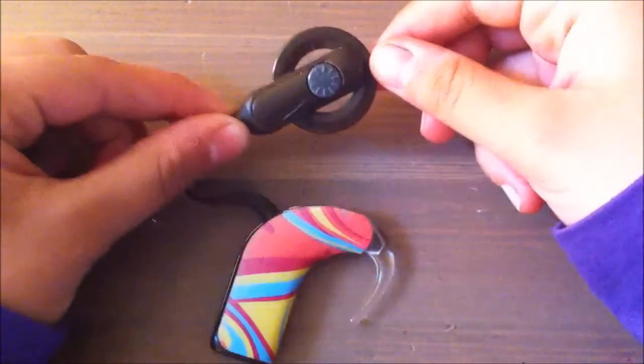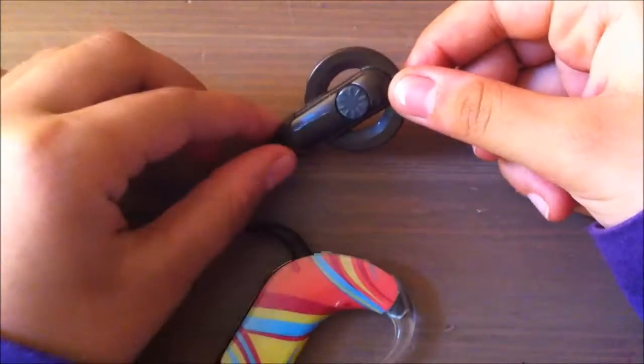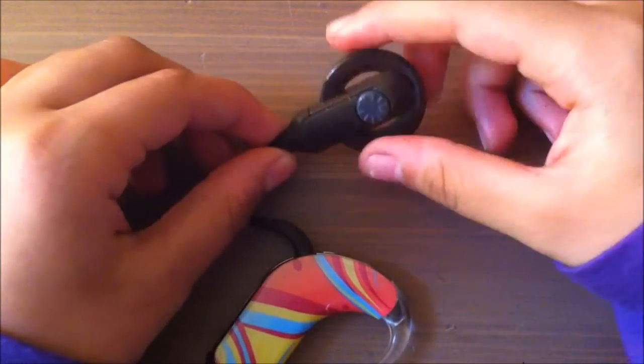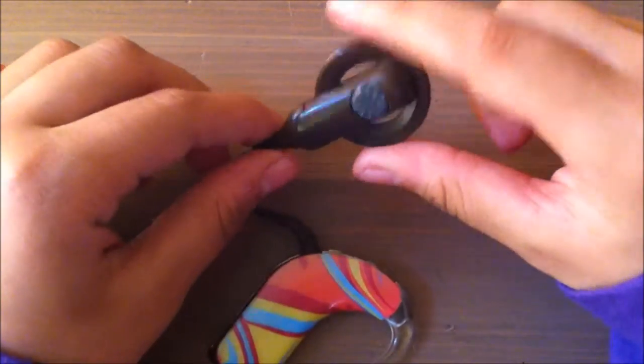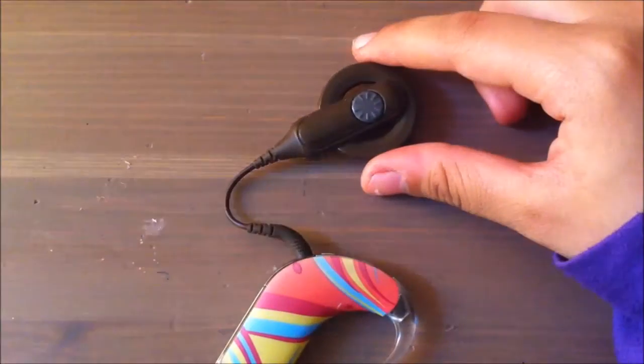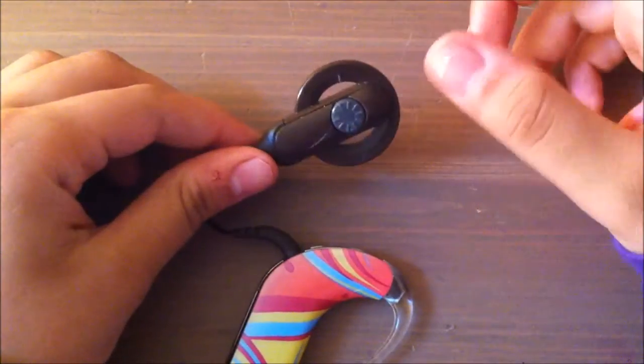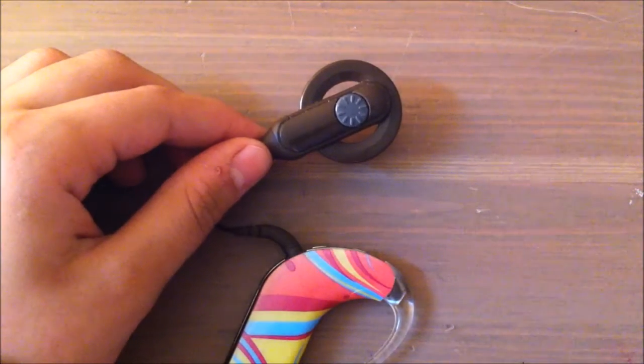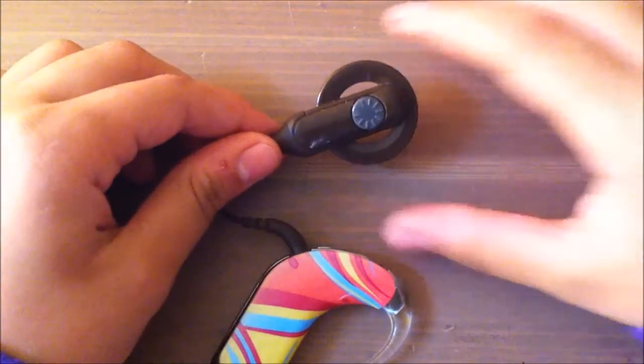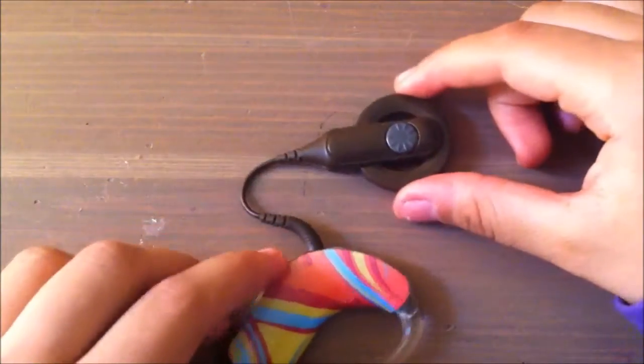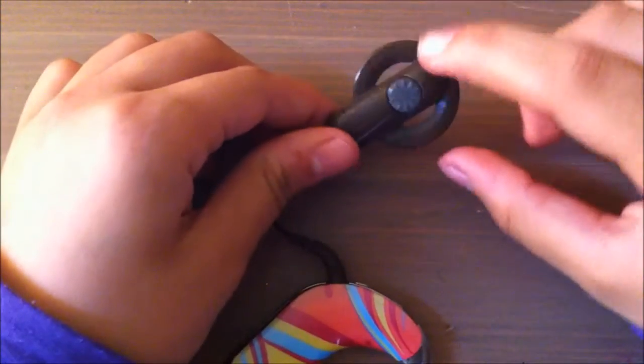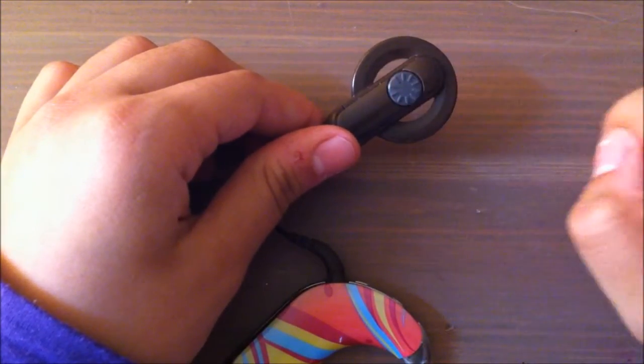First thing, of course, is this, which is the coil, and it'll be connected to whoever's wearing it on their head, right above their ear. This gray part over there is the magnet itself, and that's what will be holding it up there.